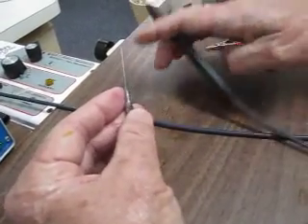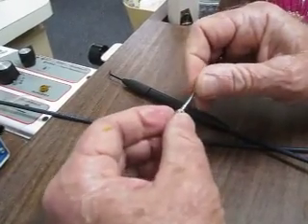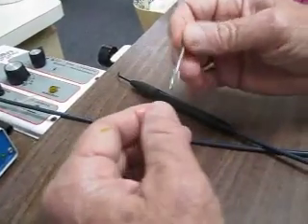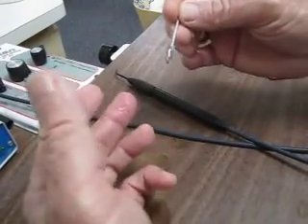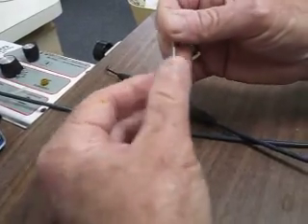What we're doing here is we're going to demonstrate touching an implant with the electrosurge and how dangerous it all is. What I have here is something that's exactly like an implant — it's a carbide burr. It has little flutes on it, like an implant has flutes.